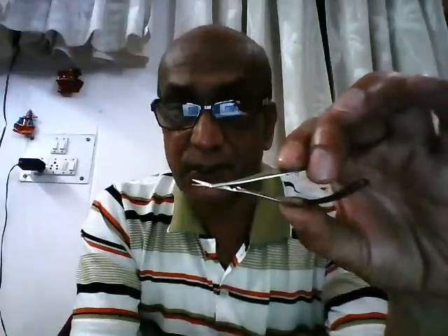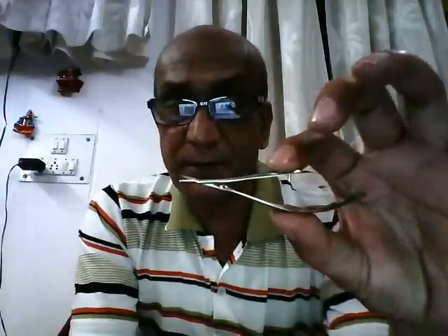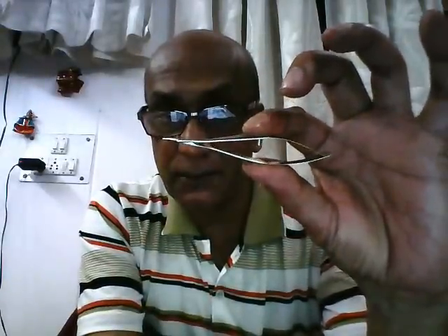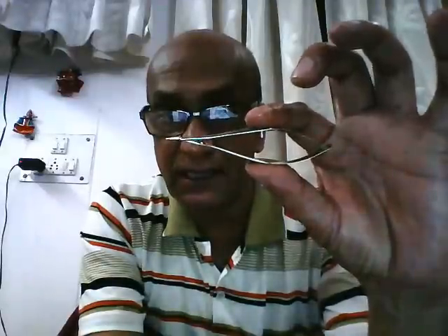This instrument is Dewecker's iris scissors. It is used for cutting the iris during iridectomy procedures and for delicate intraocular procedures. The two limbs are highly springy, making this a spring-open scissors. The tails of the two springs are interlocked — one inserted into a slot of the other — to prevent them from coming apart.